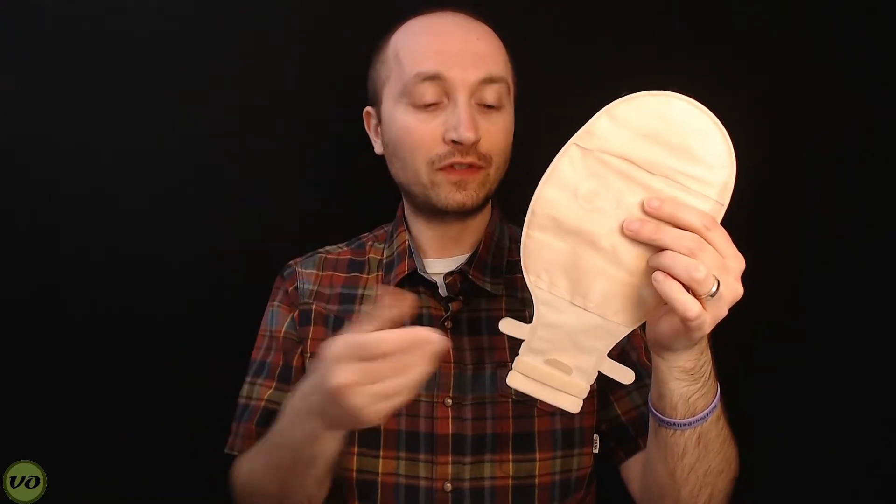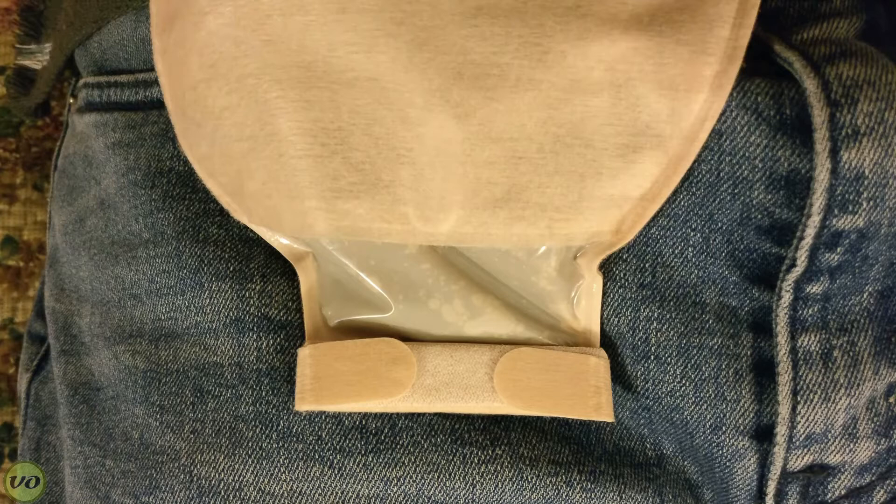Making my way down to the bottom of the bag, one of the nice things I appreciate is that the bottom of the outlet is a solid, opaque color. I've used certain appliances where this part is actually clear, and that poses a lot of problems. When you have the bag closed, with those clear outlets you can still kind of see what's inside, and it's pretty obvious what's in there. This helps to mask it, so that's obviously a good thing.